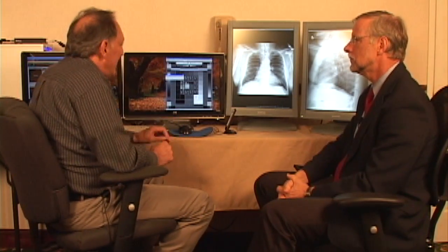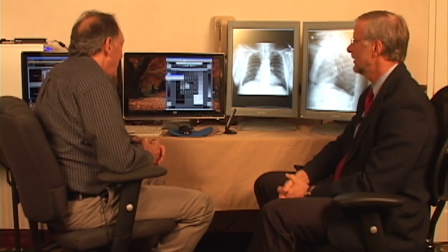In contrast, this particular brand here, which is a higher quality display, I can do with 32 points and get an excellent response curve out of it. And it's just a difference in the quality. So you have to be careful what you buy. You just can't buy the cheapest. You don't want to buy the bottom of the line.